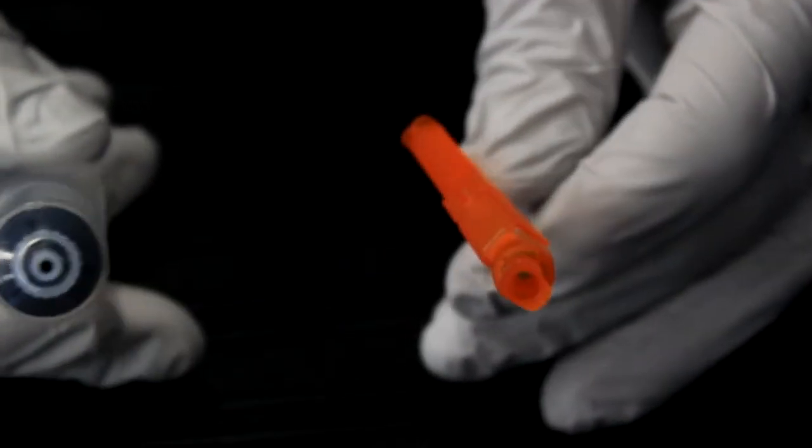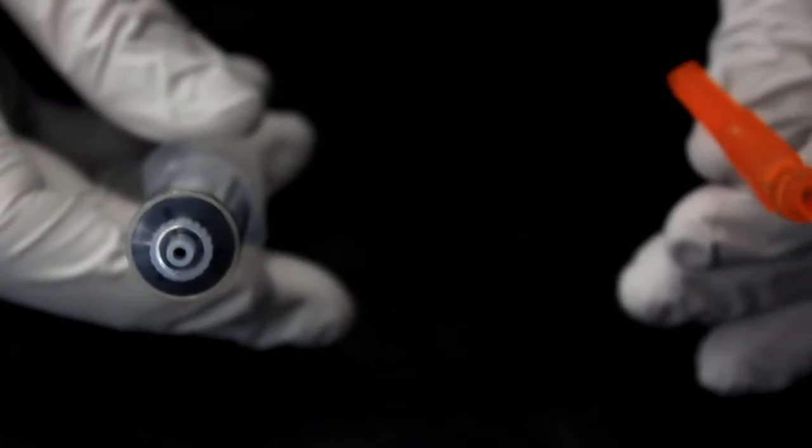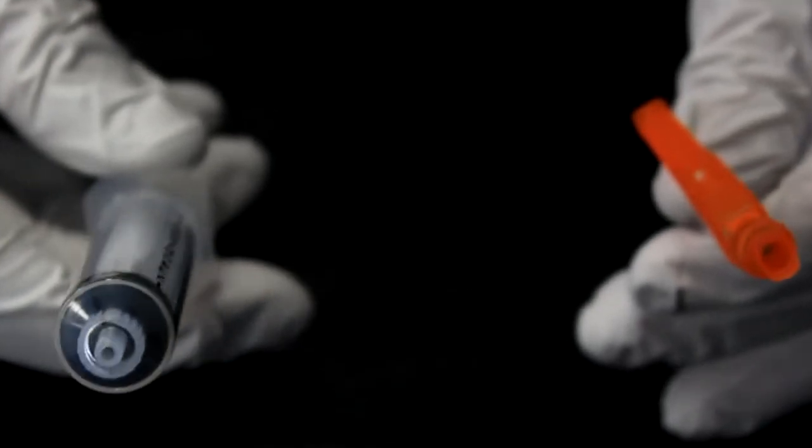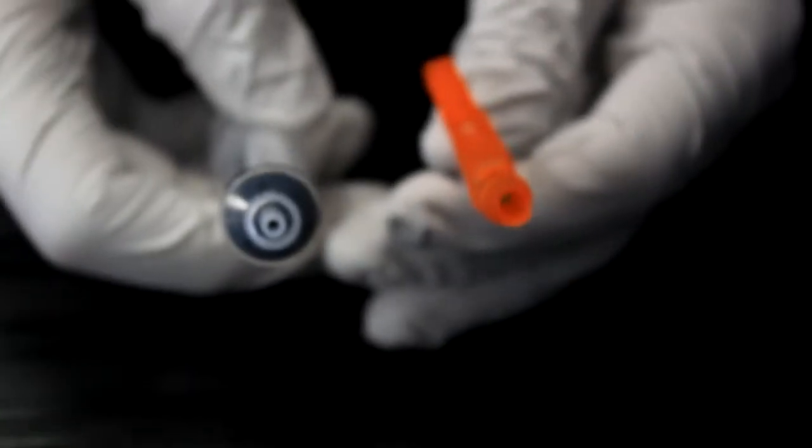Upon opening the syringe and needle, it is important to note that their ends are not capped. In order to maintain the sterility of the collection, it is imperative that you do not touch these exposed ends with anything.